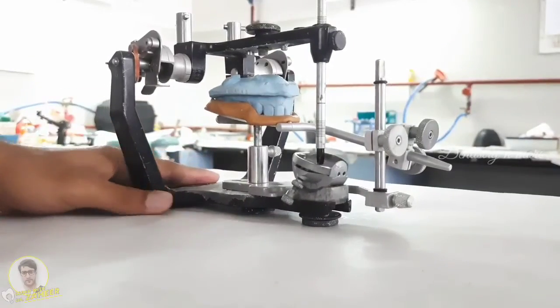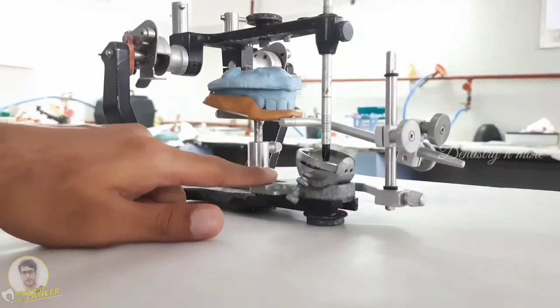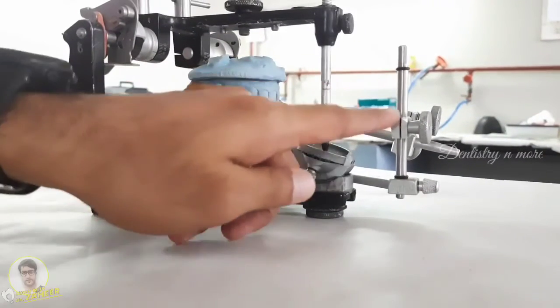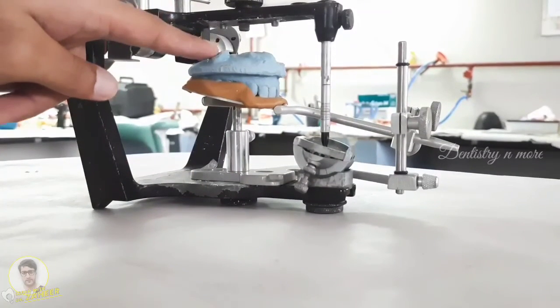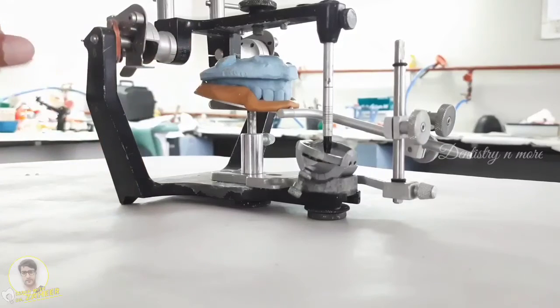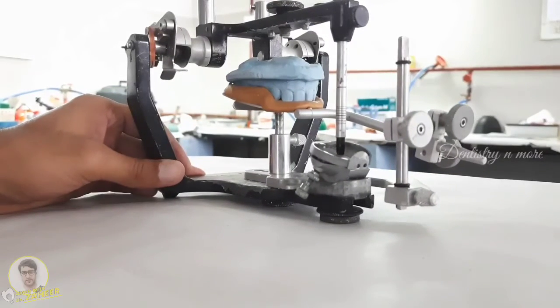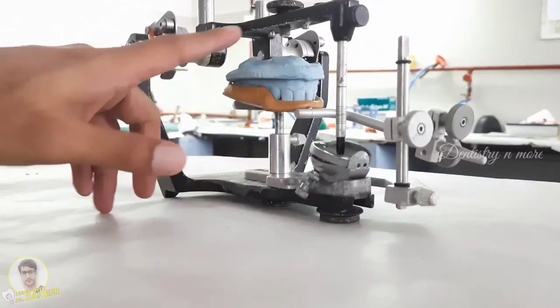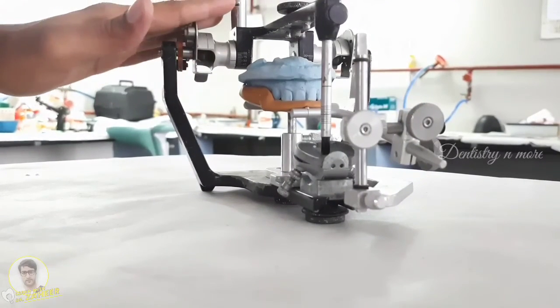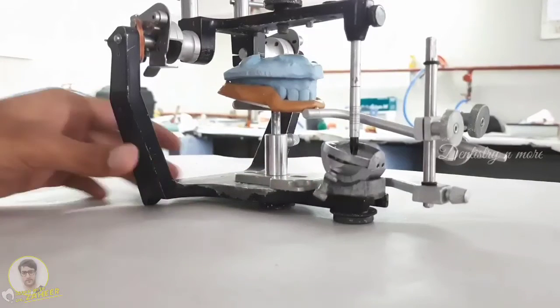What you're seeing over here is how a facebow transfer is made. A facebow record is done in the patient's mouth, and what you're seeing here is the facebow transfer. This portion is the indirect facebow transfer table, this is the cast holder, this is the locking device that we used, this is the bite registration material, and this is the maxillary cast of the patient. This entire transfer table setup indicates how the maxilla is oriented with respect to the terminal hinge axis or the temporomandibular joint in the patient. The facebow record helps us achieve the orientation jaw relation, and once we do this facebow transfer, what we are seeing is the orientation of the maxilla with respect to the condyles in the temporomandibular joint. This is the objective of the orientation jaw relation, achieved by a facebow record and transferred to the articulator using the facebow transfer.